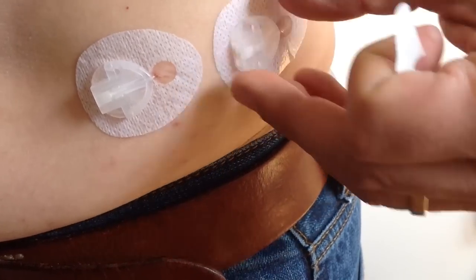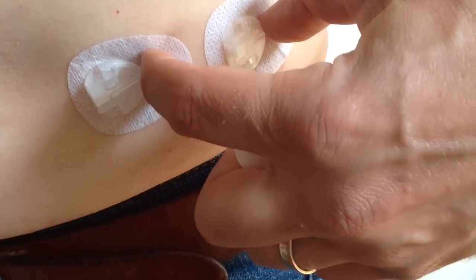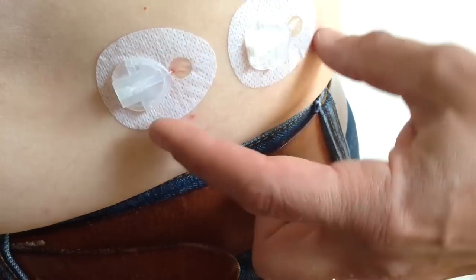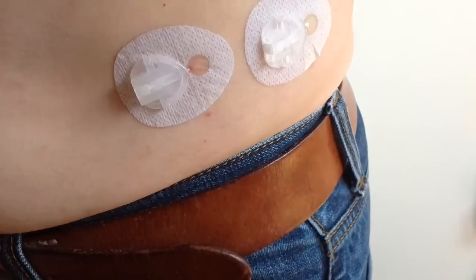And I was advised by my nurse to try and make sure that there's at least an inch and a half between sites. But I like to keep them fairly tightly together if I can. Just so I get good use of the available area.